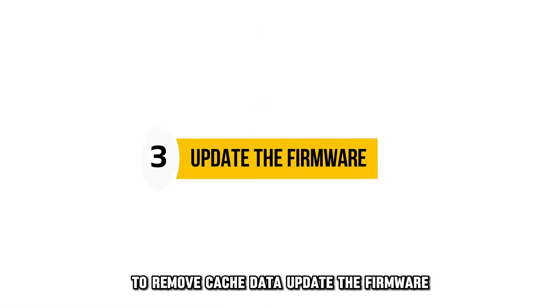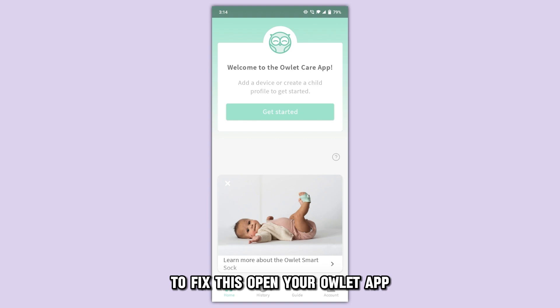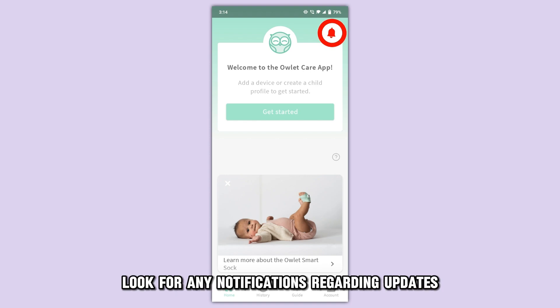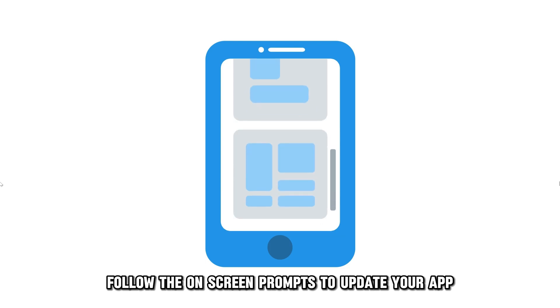Update the firmware. Open your Owlet app and look for any notifications regarding updates. Follow the on-screen prompts to update your app.